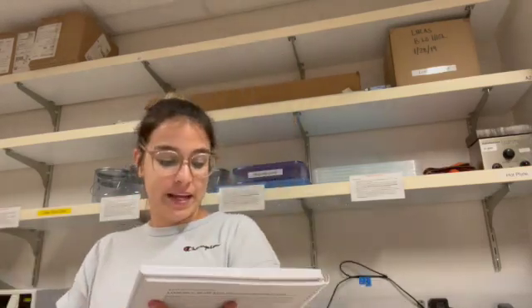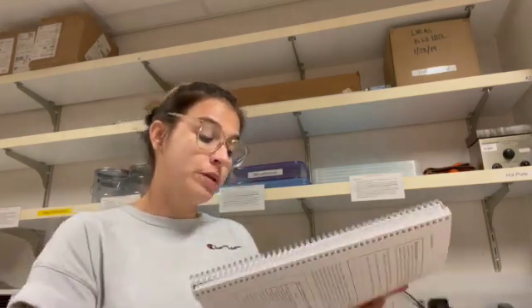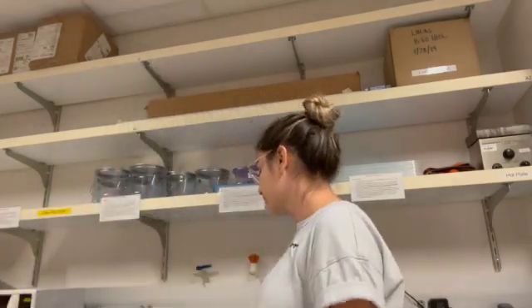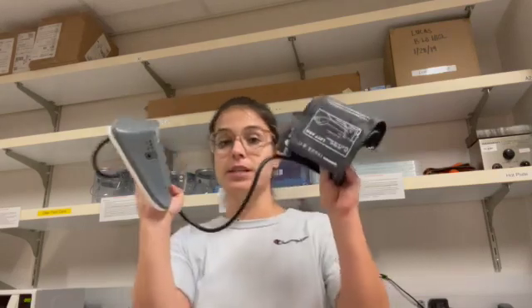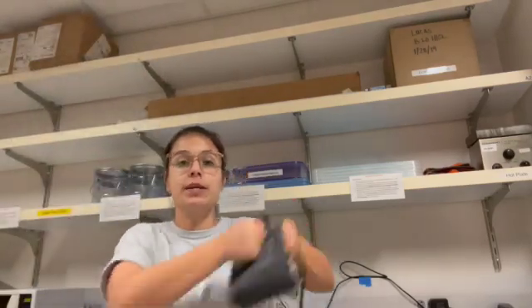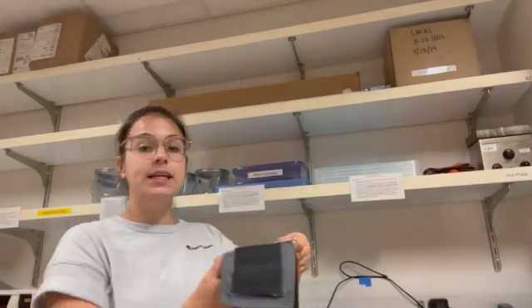And then page 63, this is going to be blood pressure. So instead of heart rate being measured with the 2 fingers on your radial artery, blood pressure is going to be done with the cuff itself. So heart rate is with the fingers on your radial artery, and blood pressure is going to be with the cuff. So for the cuff, your students will be sitting.